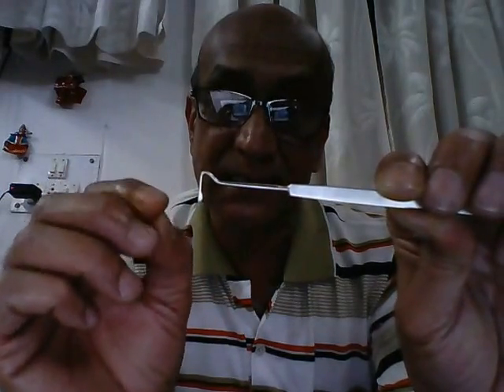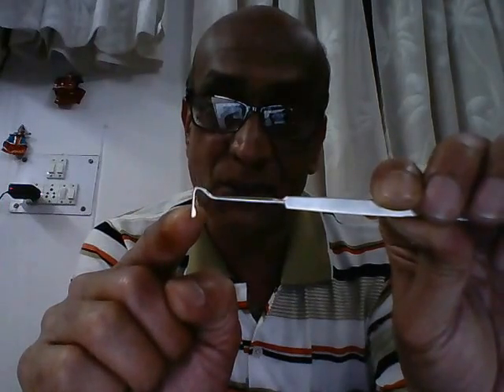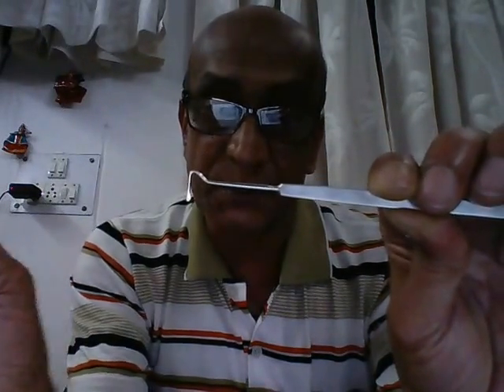Though there is no real comparison, there may theoretically be a confusion between this strabismus hook and the lens expressor. The lens expressor is an instrument used to express out the cataractous lens during cataract surgery. The difference is that in the lens expressor, the angulation is at right angles and the end is not flattened sideways but is rounded. So this is a strabismus hook, or muscle hook, or squint hook, used in strabismus surgery.